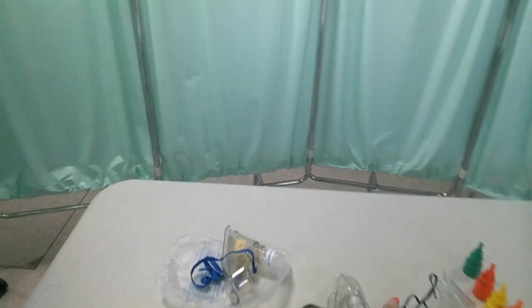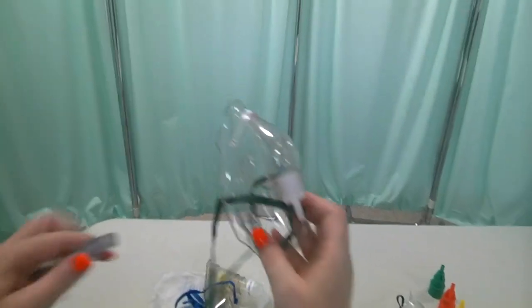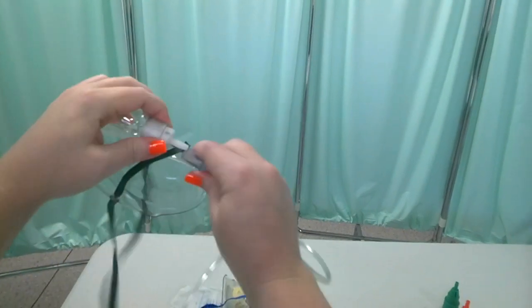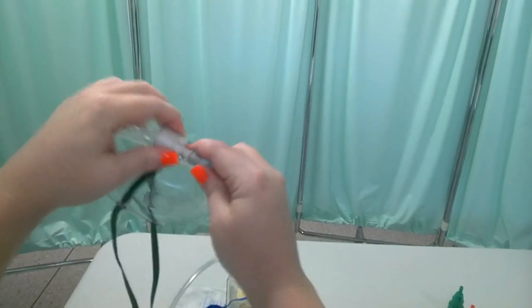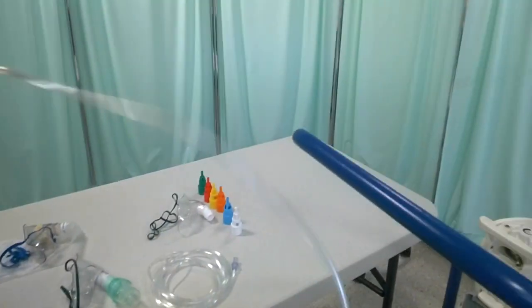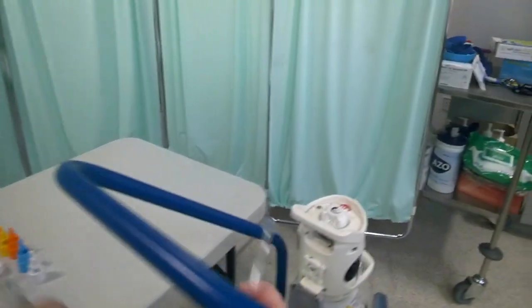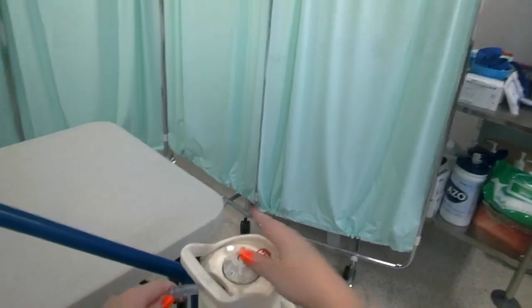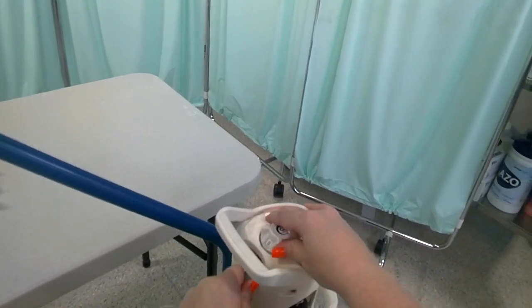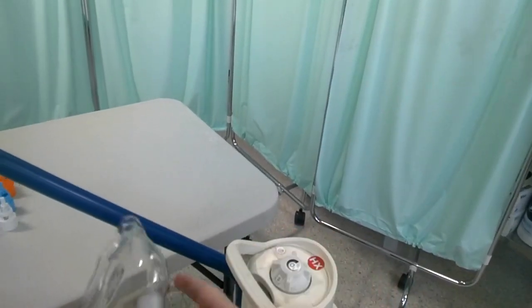To show you the mechanics of how to actually use and apply a Hudson mask, we work from the device backwards to the source, attaching the tubing to the mask first, and then the tubing to the source — in this case the cylinder, but it may be a pipe to the supply on the wall itself.